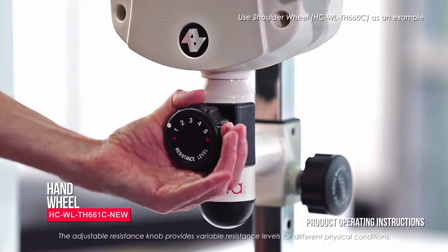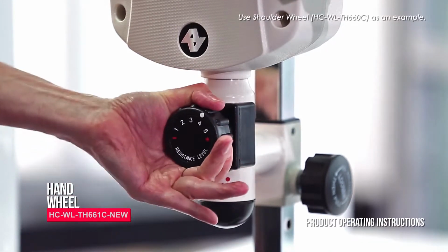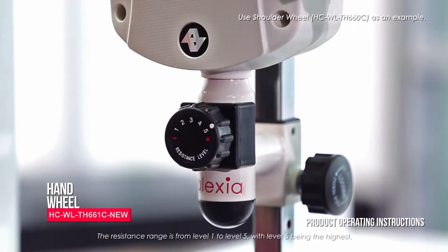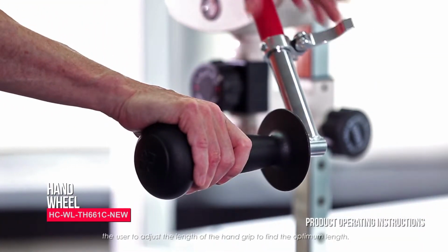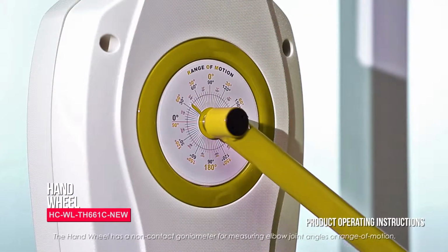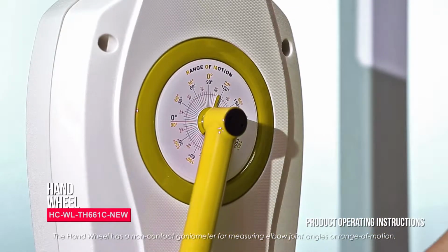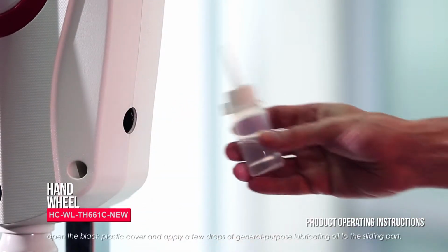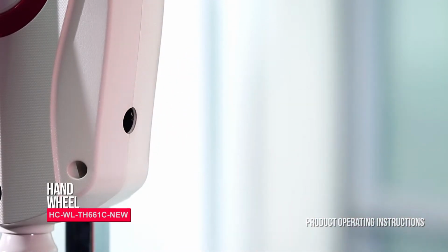The adjustable resistance knob provides variable resistance levels for different physical conditions. The resistance range is from level 1 to level 5, with level 5 being the highest. The hand wheel has an adjustment clamp to allow the user to adjust the length of the hand grip to find the optimum length. The hand wheel has a non-contact goniometer for measuring elbow joint angles and range of motion. If the resistance is abnormal, open the black plastic cover and apply a few drops of general-purpose lubricating oil to the sliding part.